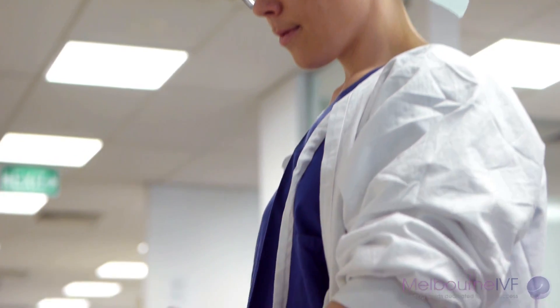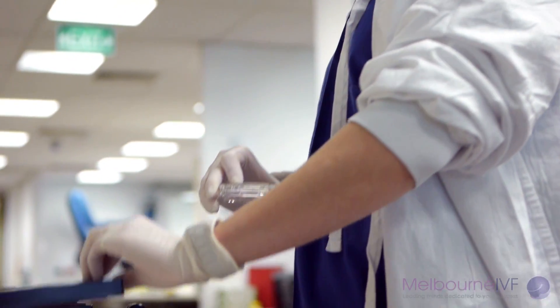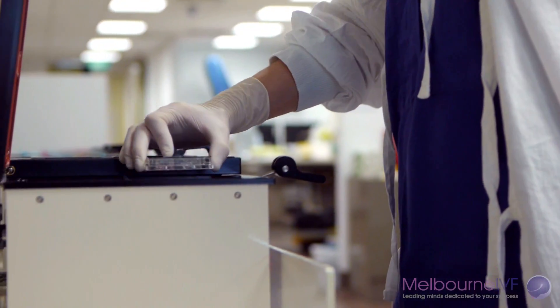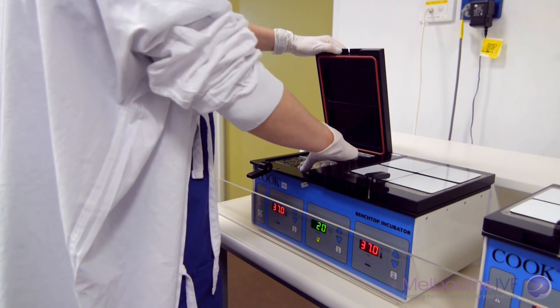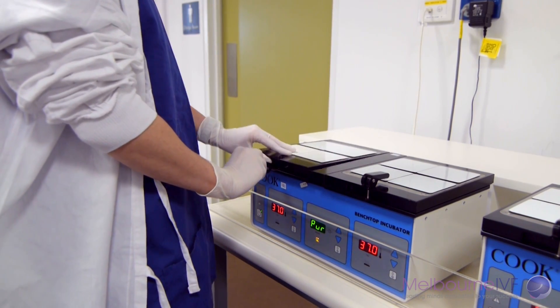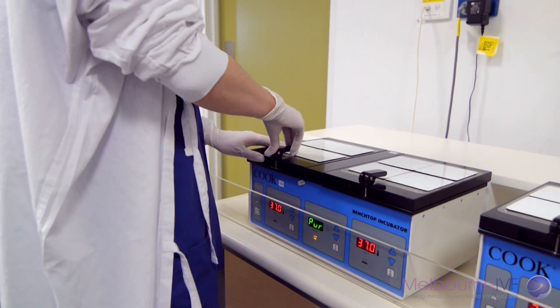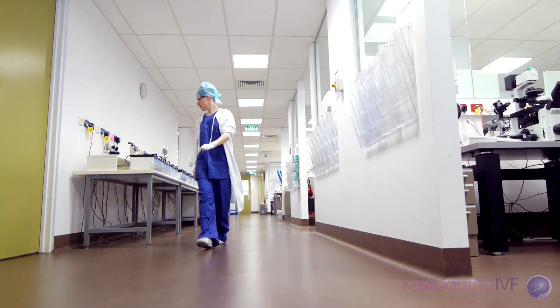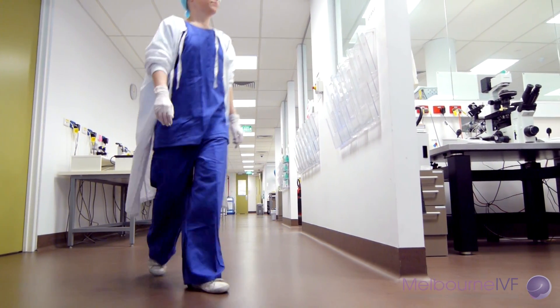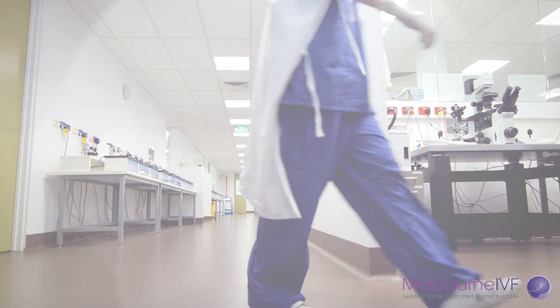The embryos are then incubated and monitored for two to six days. Fertilisation takes place in incubators at 37 degrees, where the atmosphere, humidity, and temperature are carefully monitored and controlled.